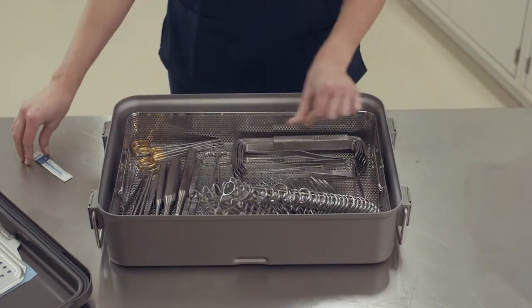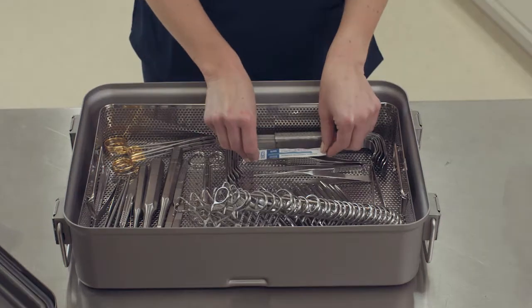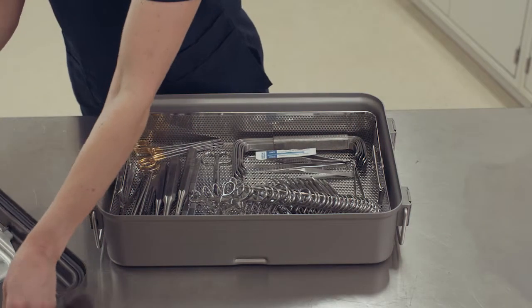Place an internal processing indicator in the set according to hospital protocols and policies. Place the lid on the container bottom, making sure it is properly seated.